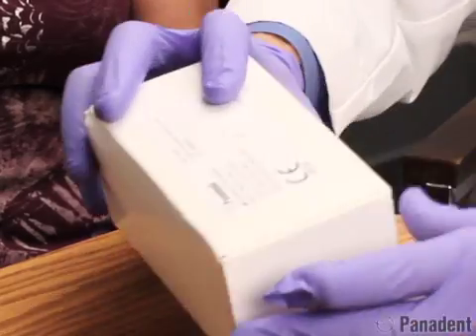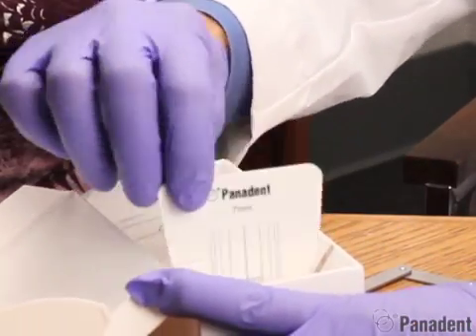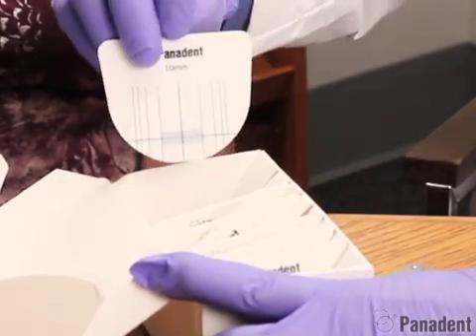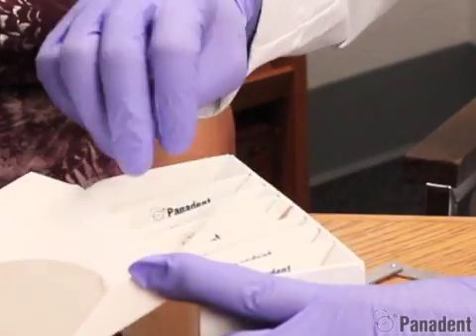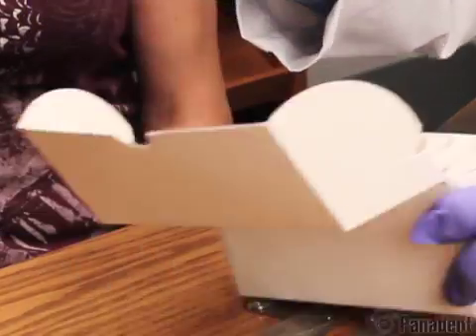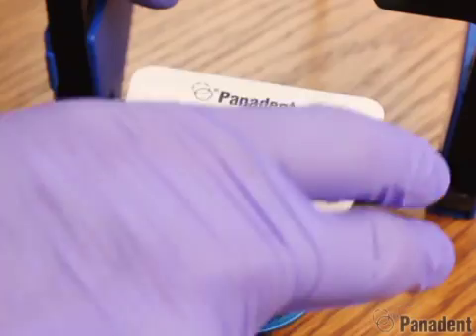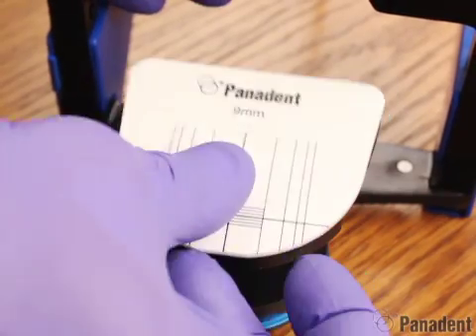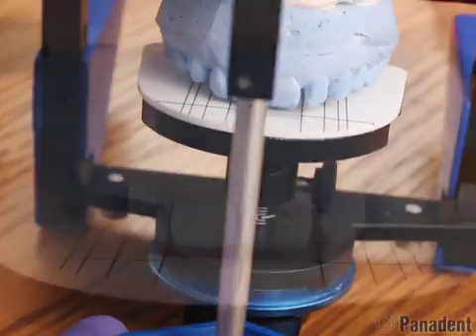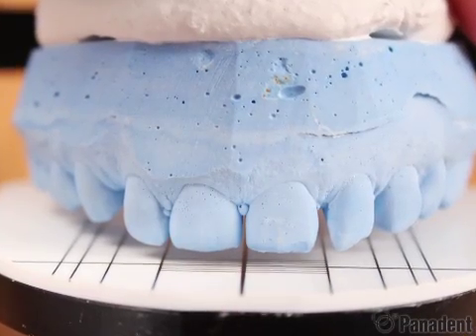We have a set of golden proportion waxing guides from 7 millimeters up to 10 millimeters in half-millimeter increments. So we can choose the 9 millimeter golden proportion waxing guide, come to the Kois platform, add the waxing guide to it, and we can now evaluate tooth lengths as well as tooth widths all at the same time.